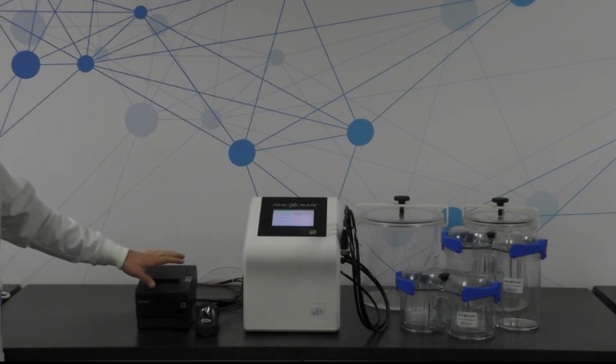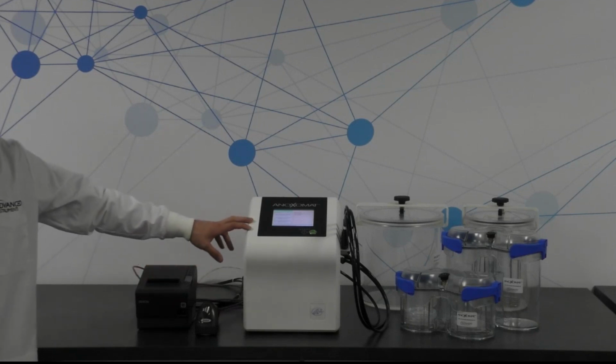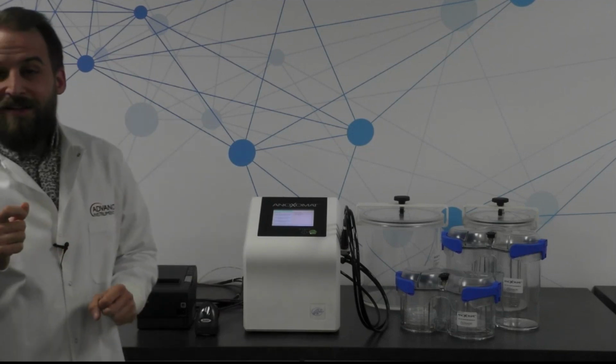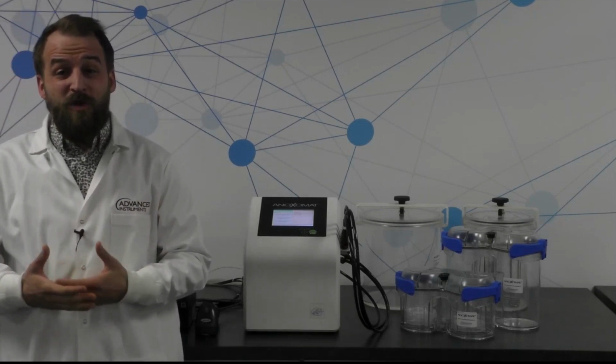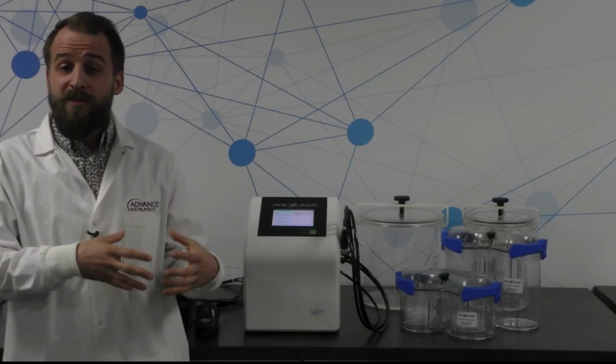So over here, you're going to get a printer, which is really important for your QC readout. There's a really robust QC mechanism that the Anoxomat III employs that really sets it apart from other sachet-based mechanisms that rely on that little blue strip that we put in there. Typically, when we use a sachet-based method, we have to wait around 2 hours to really generate an anaerobic environment for the bugs that we're trying to grow in those boxes.